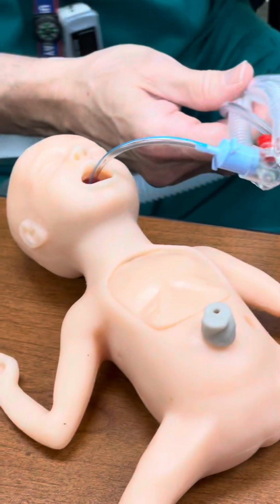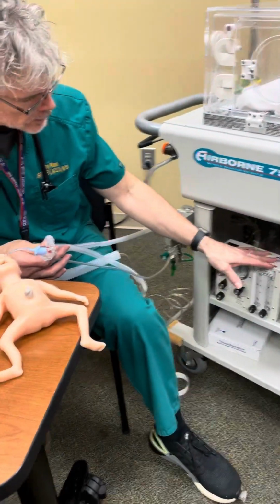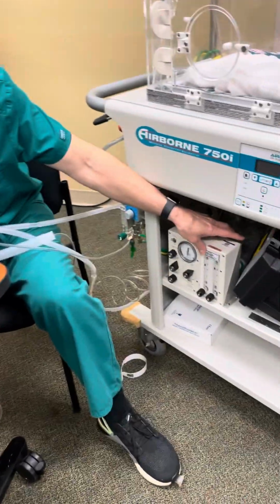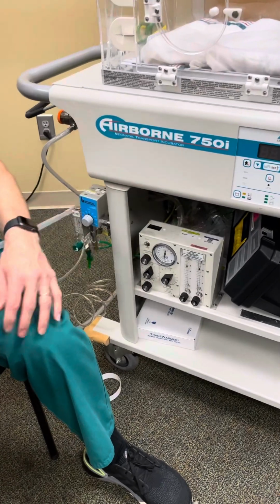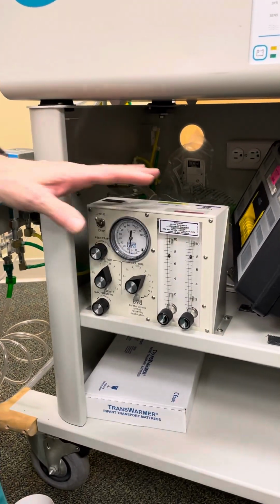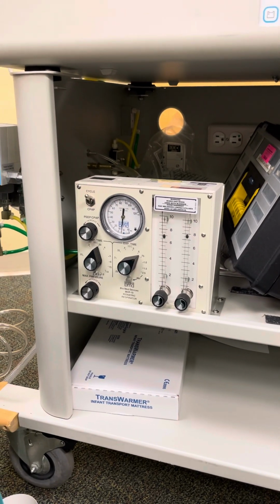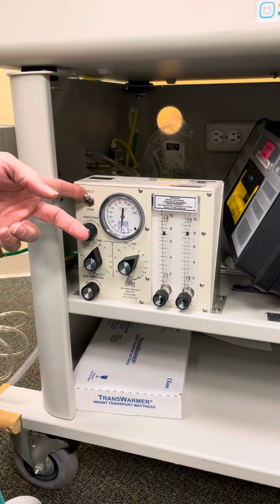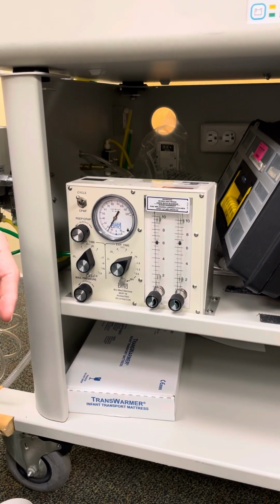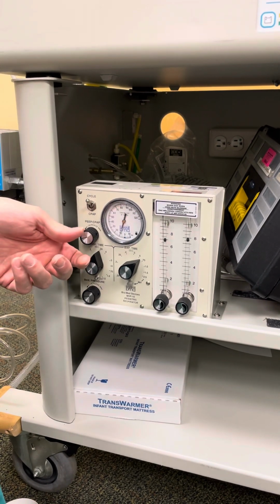You have two different modes on this little transport ventilator. By the way, this right here is your entire unit, your ventilation unit. This is your ventilator right here. So this is going to be your bread and butter right here. You have cycle time and CPAP. Right now you can see I'm in the cycle mode, and I already did my ventilator pre-check, which I'll show you really quickly.